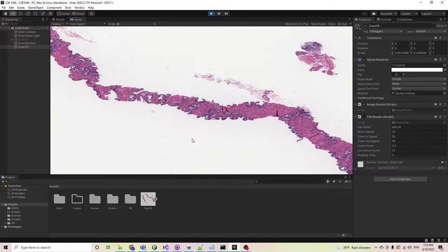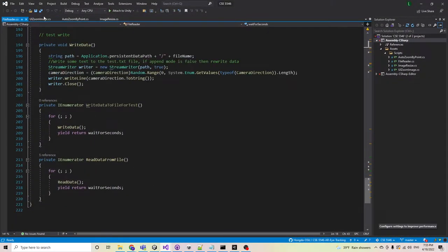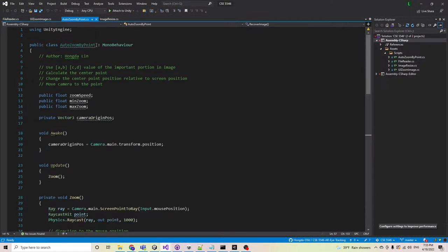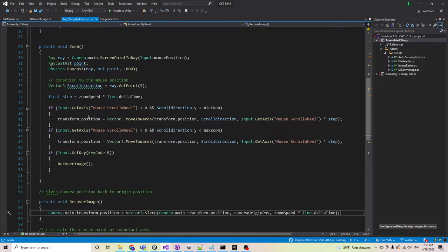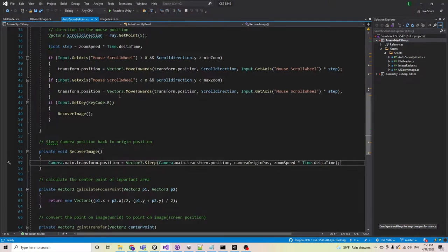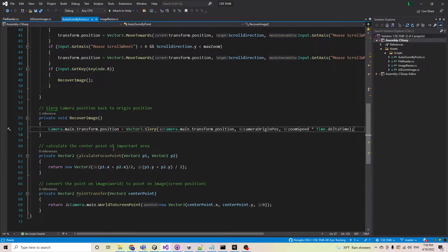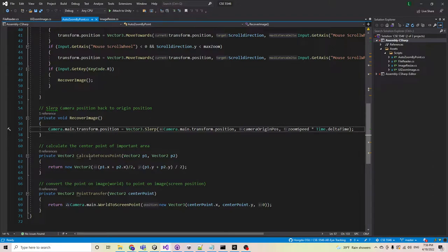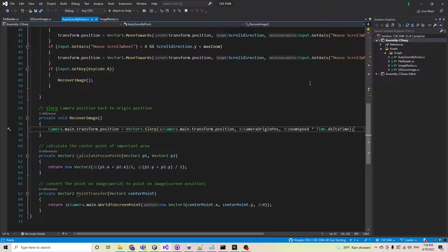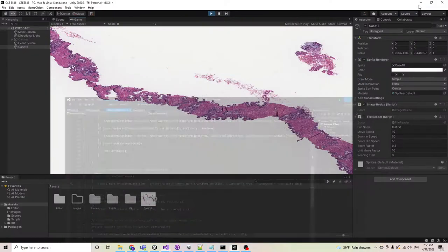This is like a manual process. However, because of the data lacking, I'll only be able to do the manual part. But if I have the data for the important area on the image, I could calculate that area to find the center point and transfer to the screen points to do an auto-zooming for the doctor to see the cancer area more efficiently.